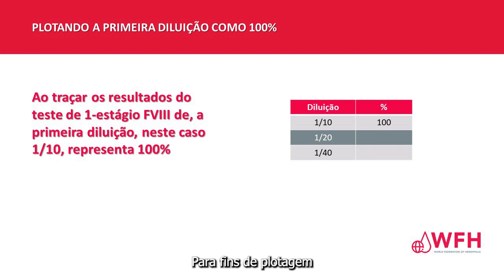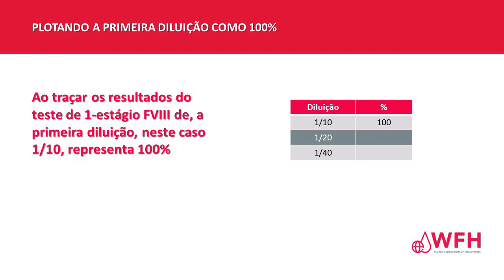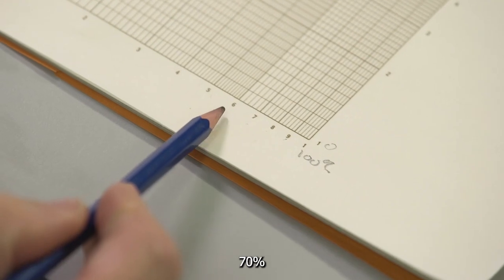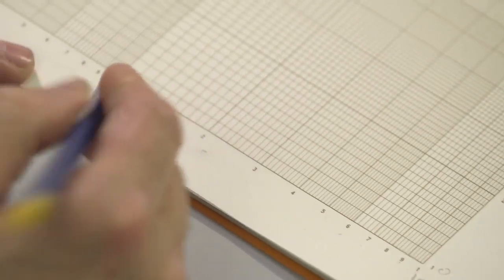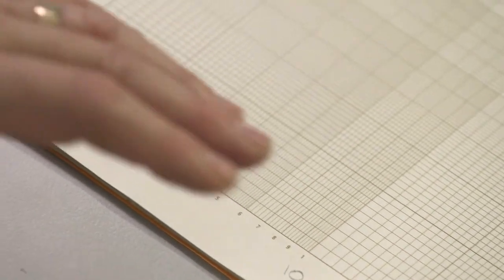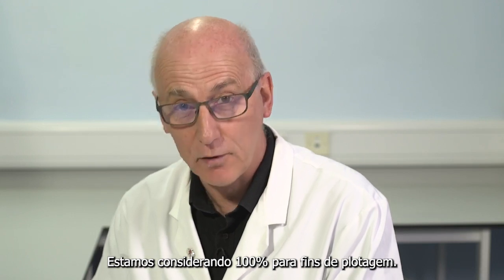For the purposes of plotting, it's conventional to take the first dilution, in this case 1 in 10, and use that as 100%. On the logarithmic scale, this is 100%, 90, 80, 70, 60, 50, 40, 30, 20, 10%, 9, 8, 7, down to 1%. First dilution, 1 in 10, which we're considering 100% for the purposes of plotting.